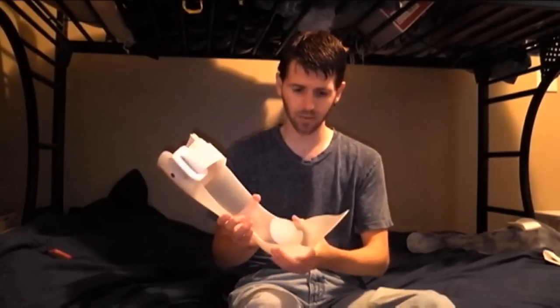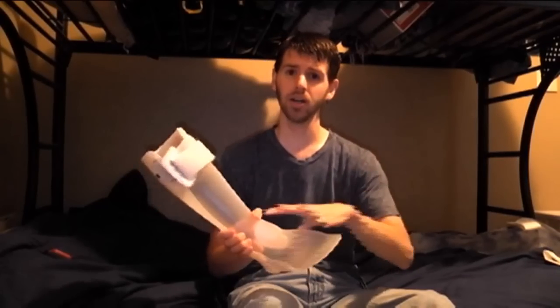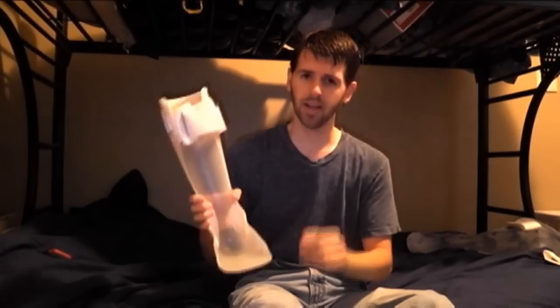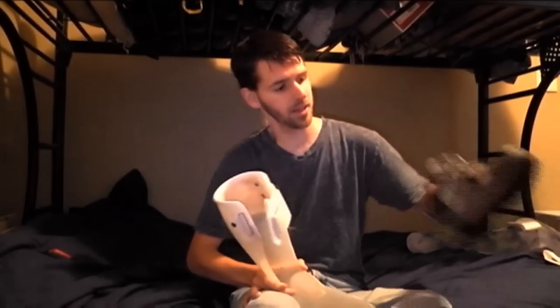The first thing — a lot of people will put this on and then they would put their shoe on on top of that. I personally like to put the shoe on first and then put my foot in and just do it that way. I'll show you exactly how I do it.